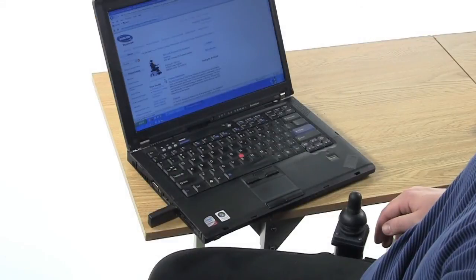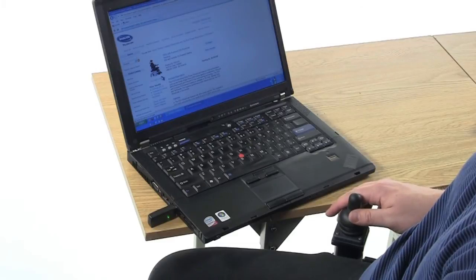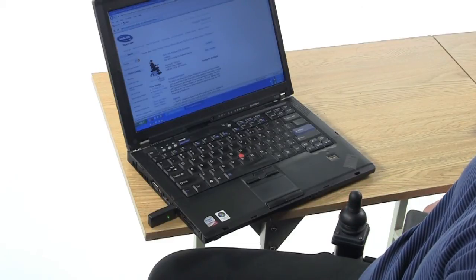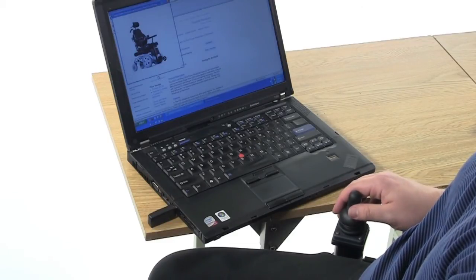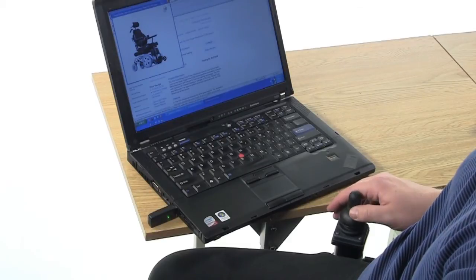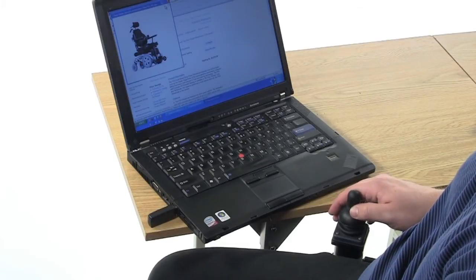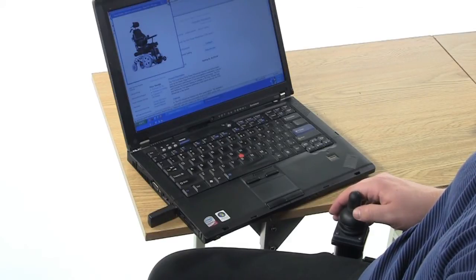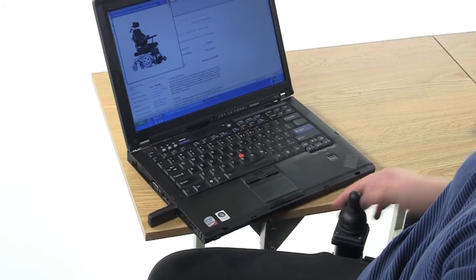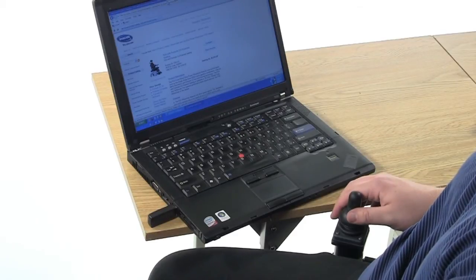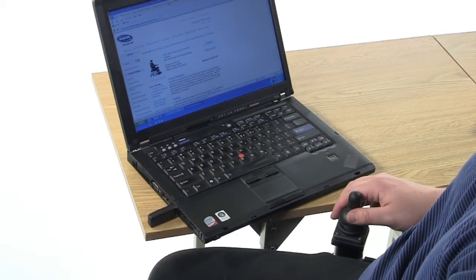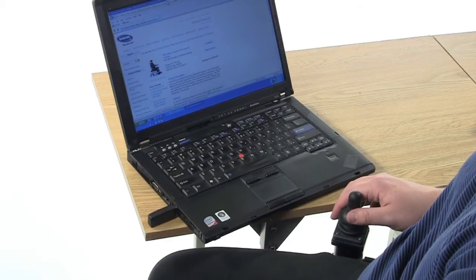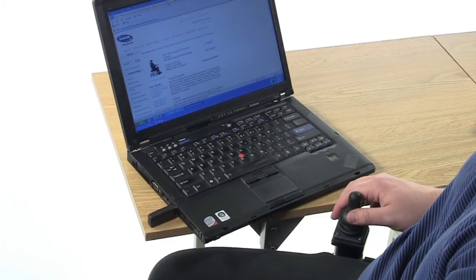As you can see, my compact joystick is operating my mouse in four quadrant mode on my laptop screen with just one simple programming step. Please see the video entitled Using the RF Mouse Emulator for more on programming options for the Invacare Mark VI RF Mouse Emulator set for three quadrant operation or four quadrant operation with a digital driver control.